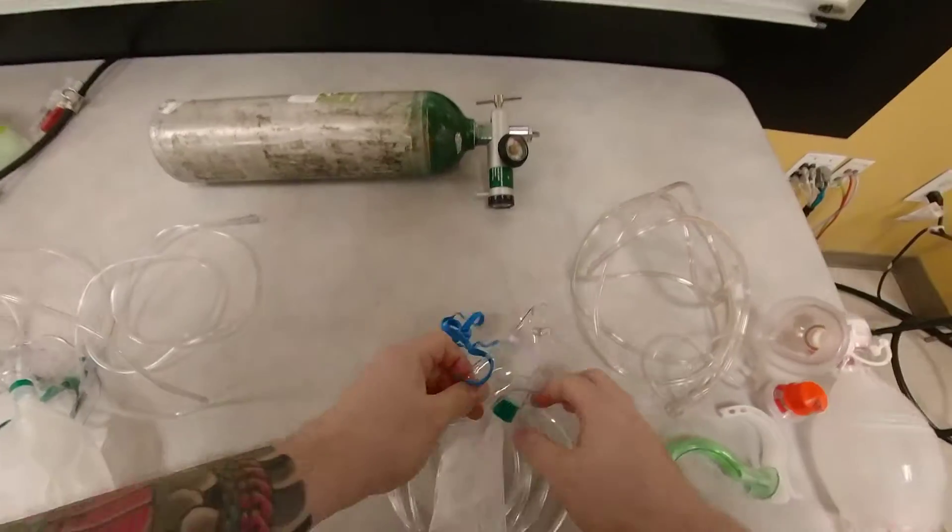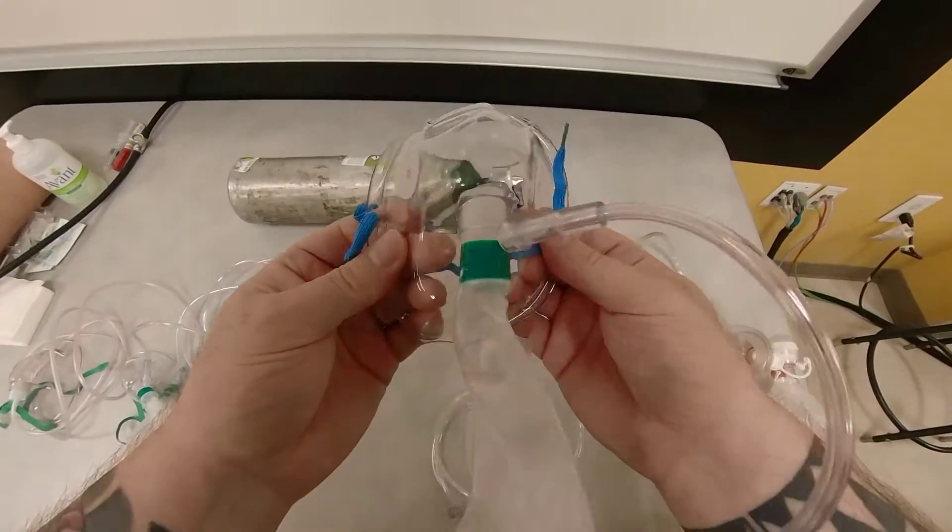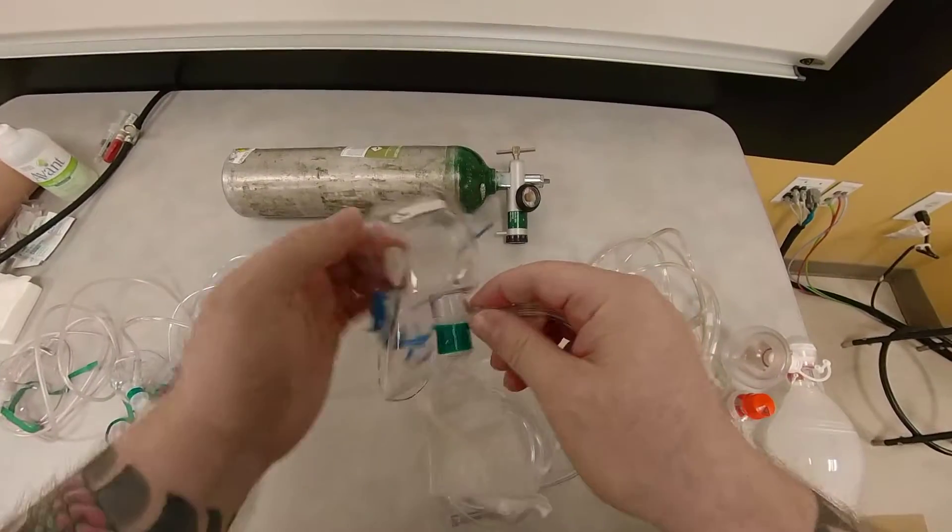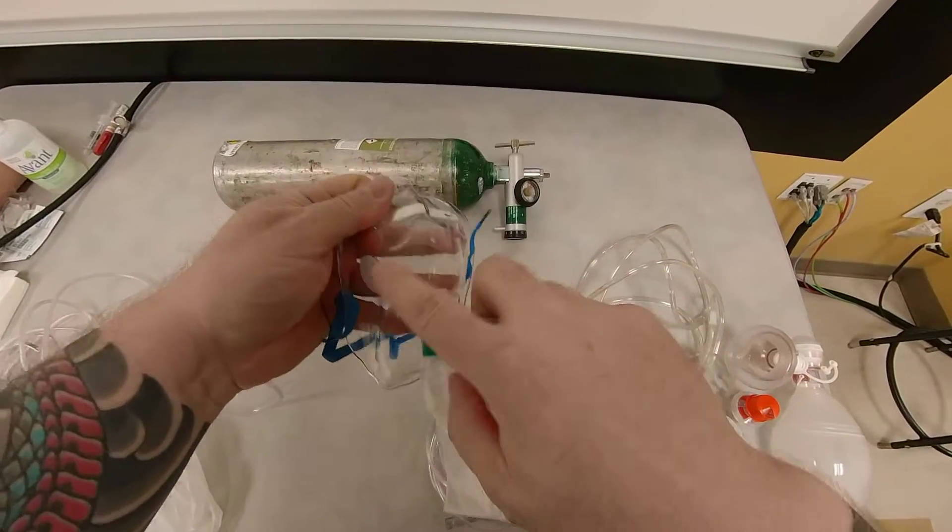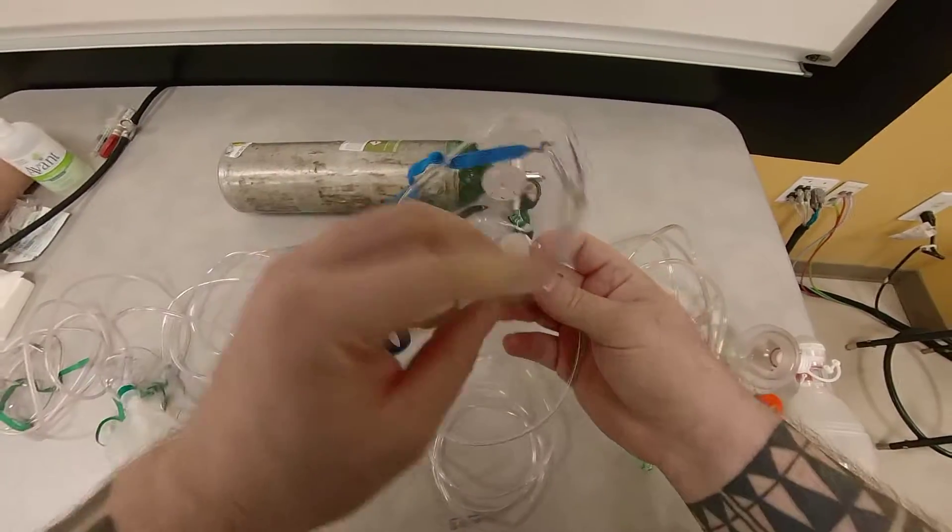But here, let me disconnect this. Here, I have a true non-rebreather mask. How do I know it's true non-rebreather mask? Well, first of all, I have one-way valves at both ports. None of them are left open.